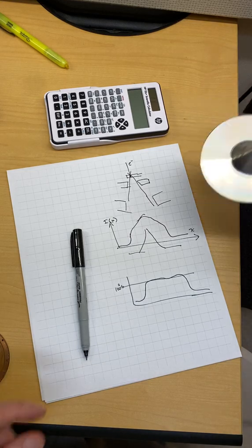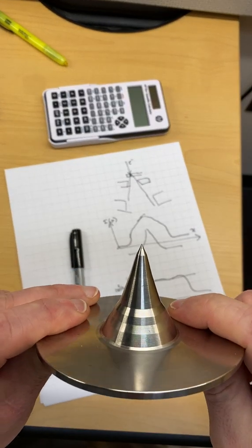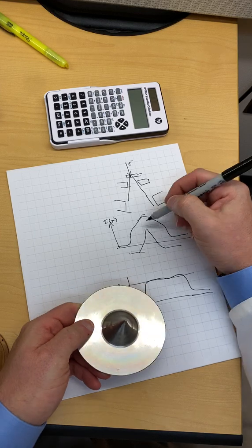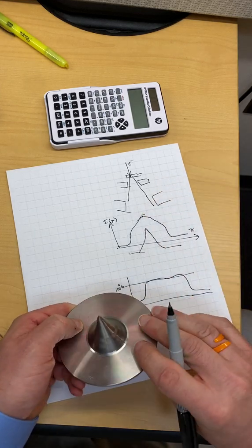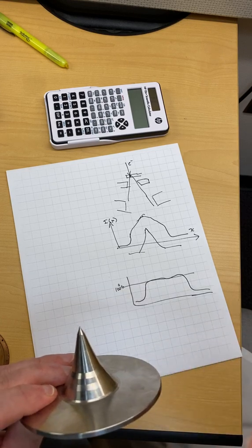The point on it is interesting. So these things are pretty darn sharp. And you have to make sure that this point of the beam is pointed right at the point of the X-ray beam. So you have to use beam steering.